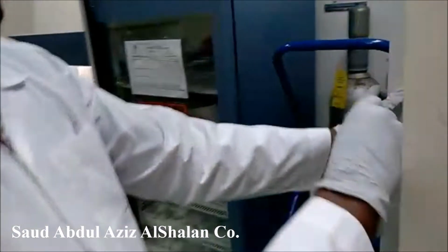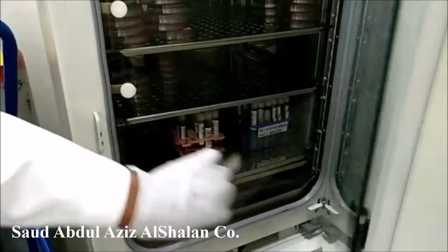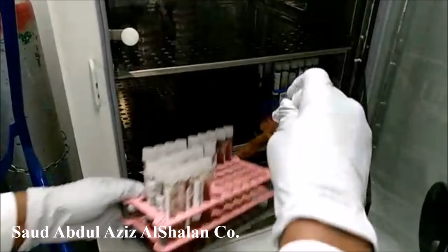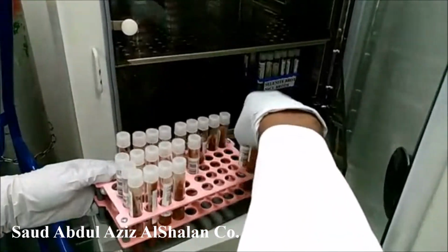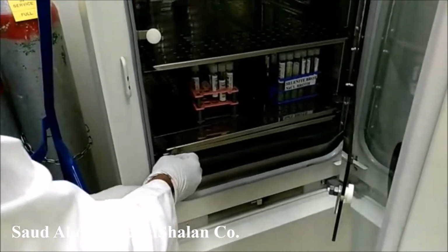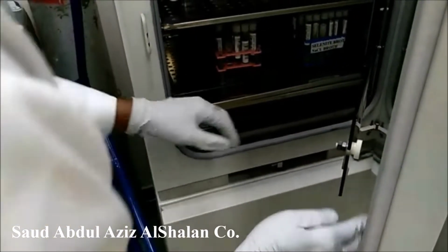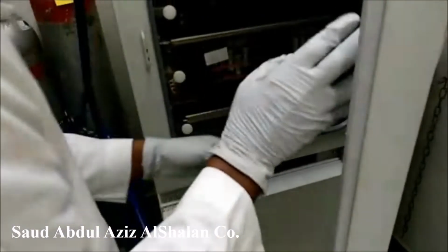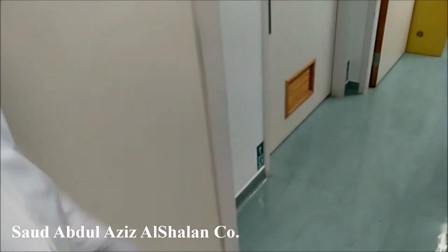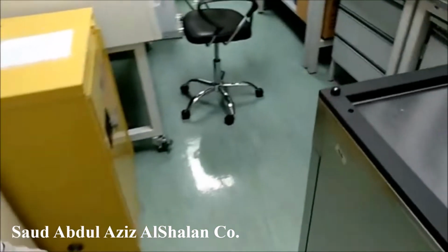This is the cooked meat. We are going to incubate it in CO2 also, for 48 hours. We are doing subculture from the cooked meat after 48 hours. Then we are going to run the tests. After incubation is done, we are going to do the identification and sensitivity.